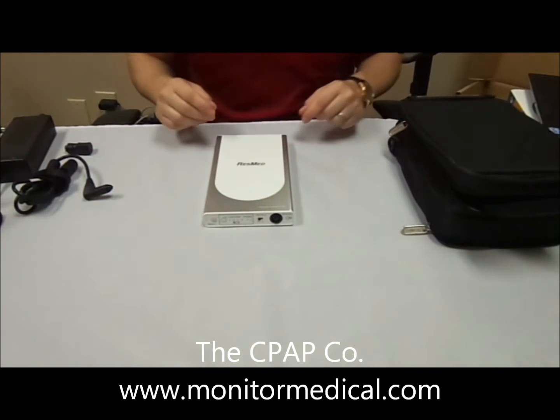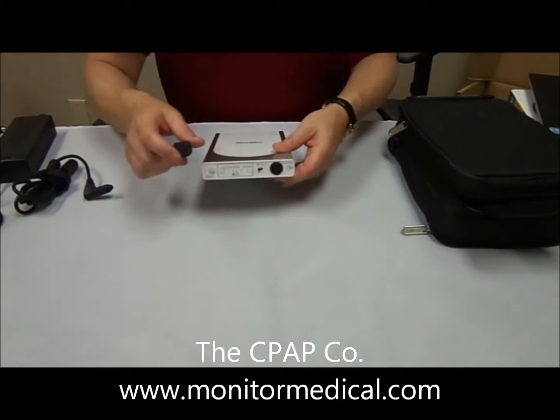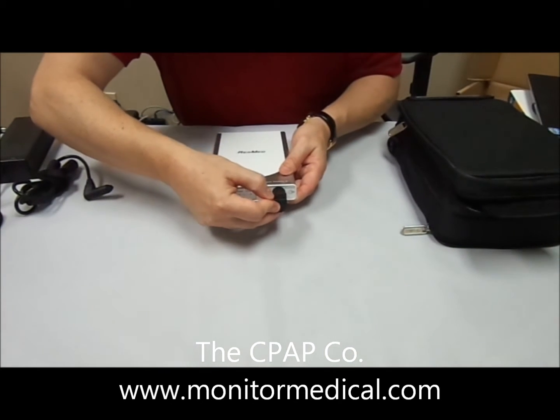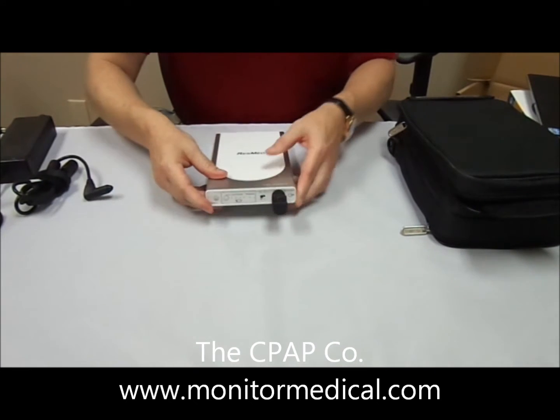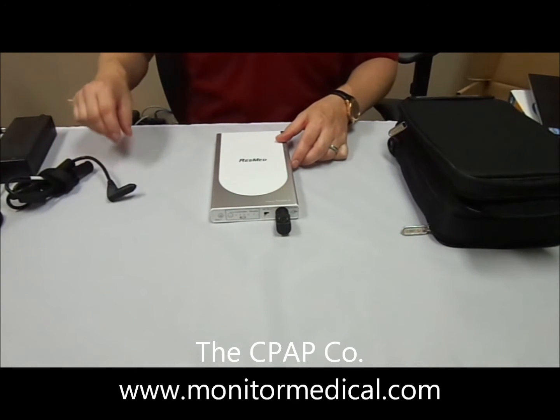First, let's discuss charging. Take the PSU adapter for charging and plug it into the back. Line the pins up and it should glide in very smooth — don't force that. Be careful not to break the pins. Once they line up, it should glide in very smooth.